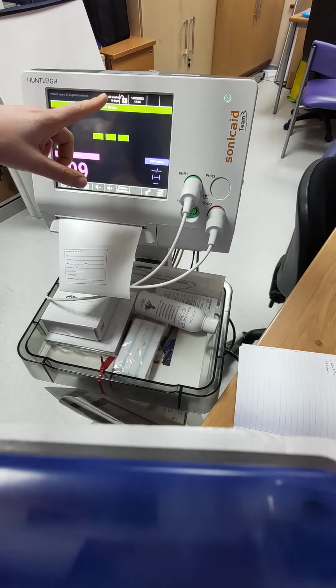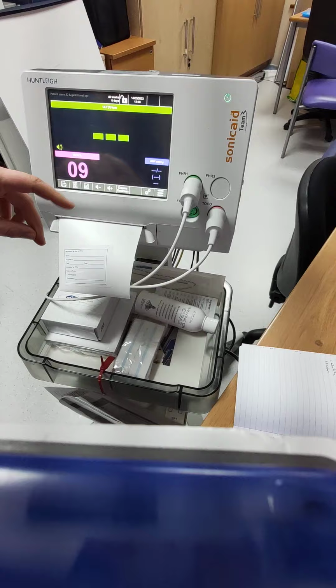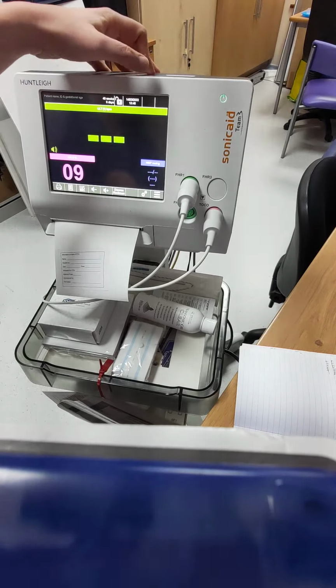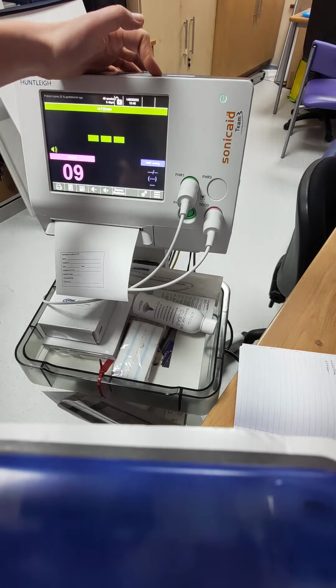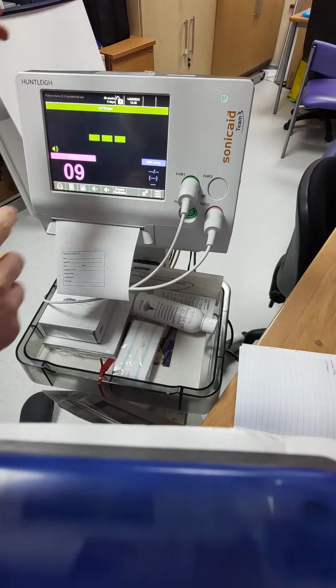The little lock button at the top will lock the touch screen so nobody else can unlock it. And then there's a code to unlock it, which is 00123, the manufacturer's default. Then you've got your time and the date, and we need to make sure that they're obviously matching the clock. These empty boxes here, one would be the battery if our machines were able to use battery without being plugged in, but they're not.